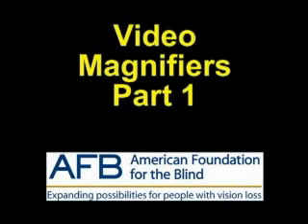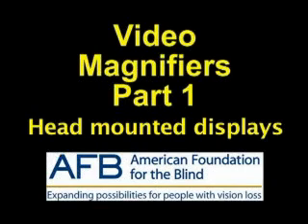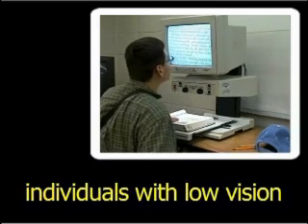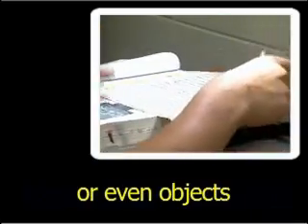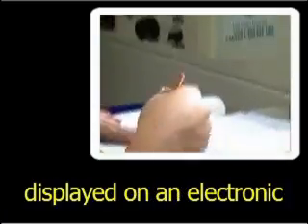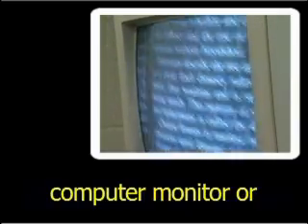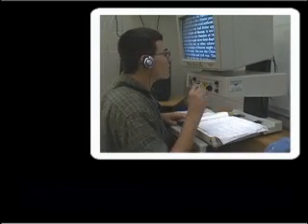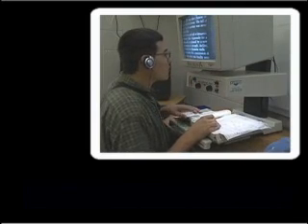Video magnifiers part 1: desktop, flex arm camera models, and head mounted displays. Video magnifiers allow individuals with low vision to place text, graphics, or even objects under a video camera and have the selected image enlarged and displayed on an electronic viewing screen such as a computer monitor or standard television. Users manipulate a book and write on a sheet placed under a camera while scanning a computer monitor.